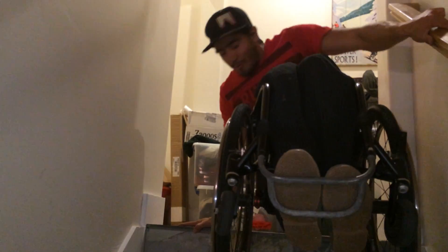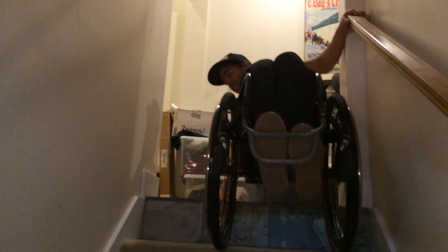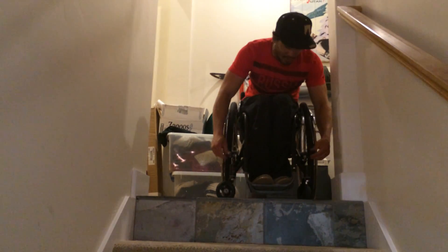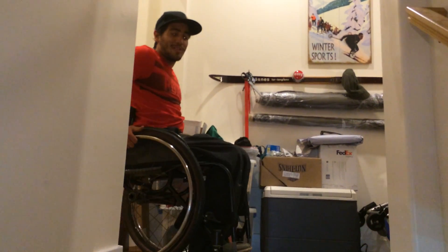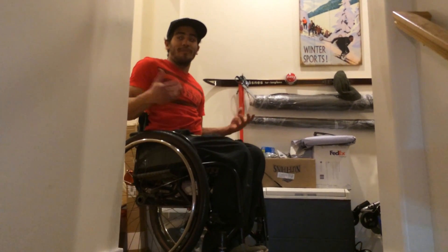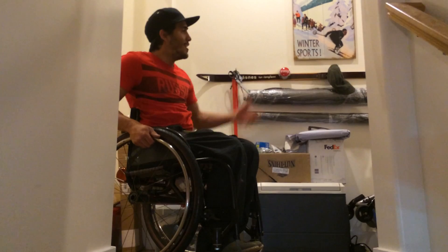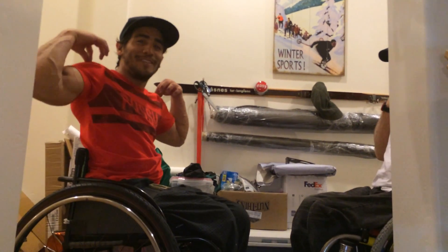The hard one would be the last step, because the handrail is not there anymore. You just have to push harder to get the front wheels up and then you just release them and you're good to go. This is awesome — stairs will never limit you and you won't be afraid to go anywhere because of stairs. Thank you very much Eric. You are great, magic in the hands. I'm officially pimped.